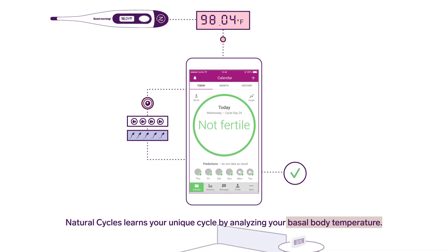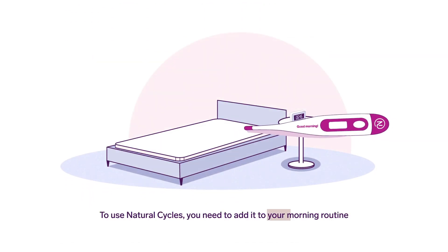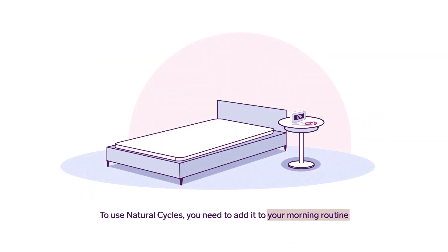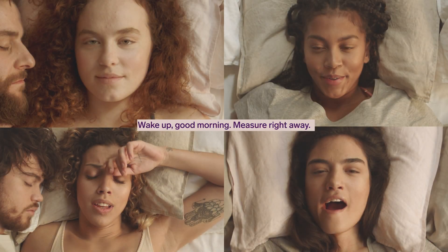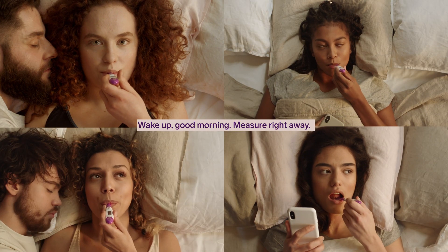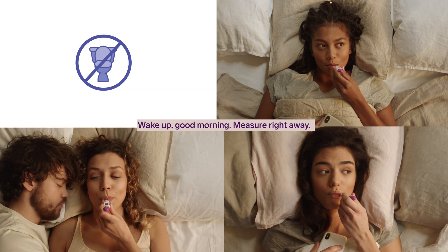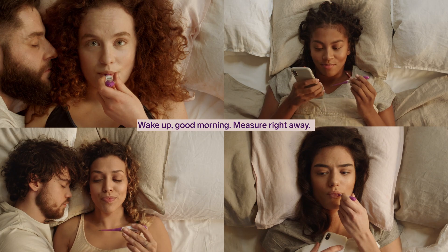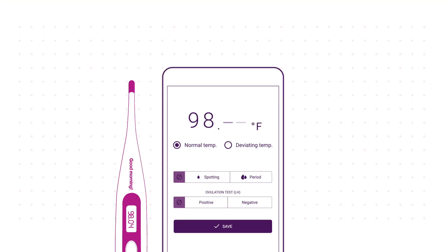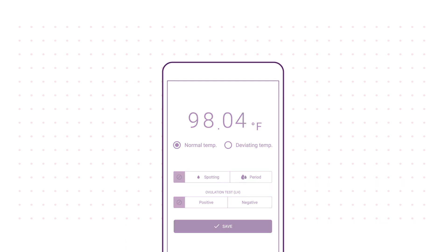To use Natural Cycles, you need to add it to your morning routine. Wake up and measure right away — don't go to the bathroom, don't have a drink of water. Measure first using a basal thermometer, which will give you your temperature with two decimals. Then enter your temperature into the app.